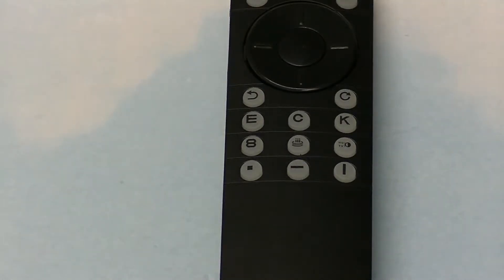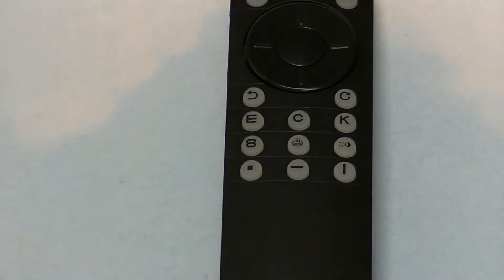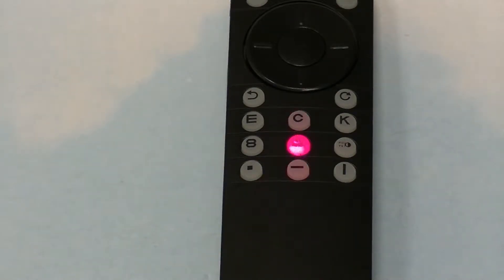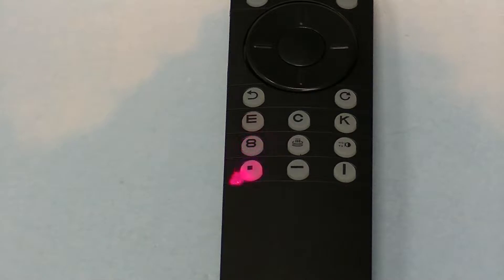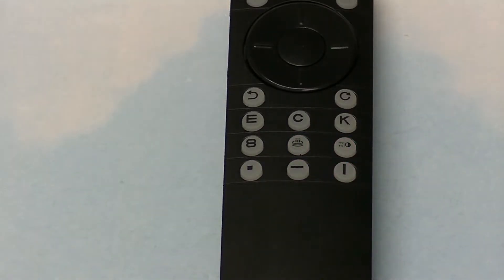Then there's a single character button. That one there is contrast — it gives you the contrast test, which is explained in the manual. And this one here is the birthday cake for kids' charts — child charts, birthday cakes, jeeps, and so on. These on the bottom give you how you want to display: single letter, single line, or vertical line — single letter, horizontal line, or vertical line for the three on the bottom. So that takes care of the remote control as far as the functions are concerned.